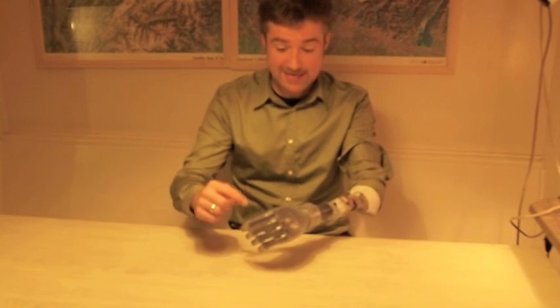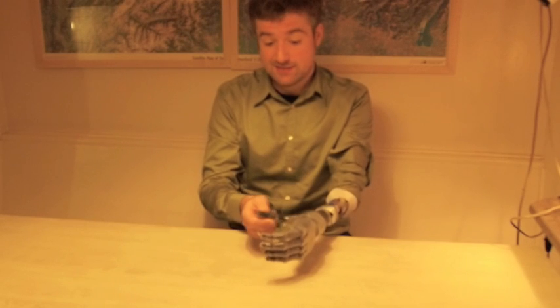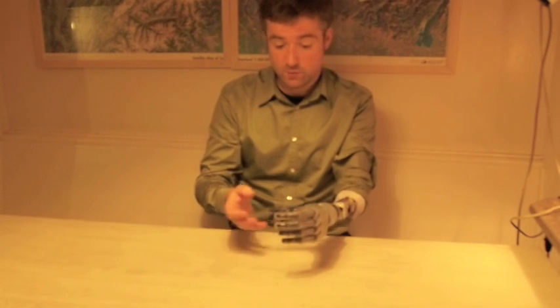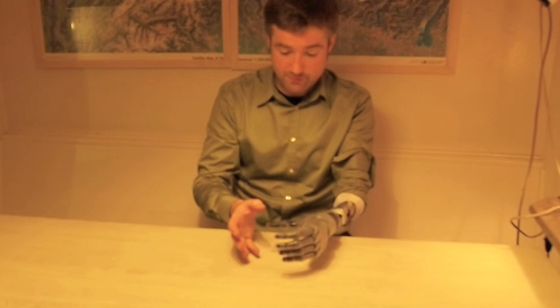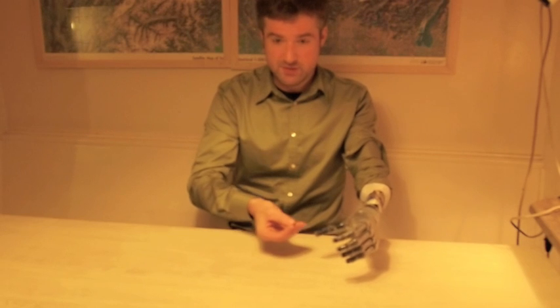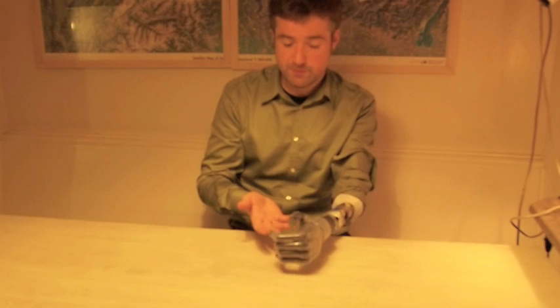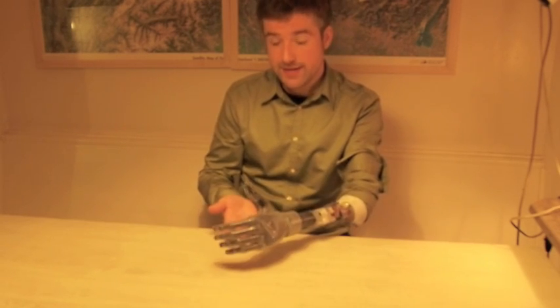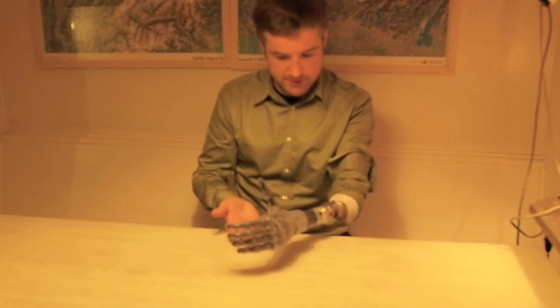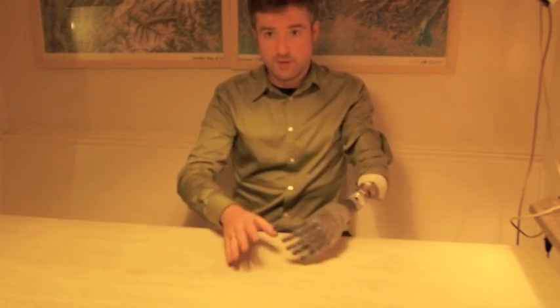The great thing about the i-limb is that it has four individual motors driving all four fingers and another one driving the thumb, so it has five movable fingers. That's the main difference to other myoelectric hand prosthetics currently on the market. Other ones only have one motor, are in a fixed position, and only allow it to open and close, which always looks unnatural. Whereas here you can actually rotate the thumb — you have to do this with the other hand, which is a bit awkward — but you can move all fingers and put the thumb in a natural-looking position.